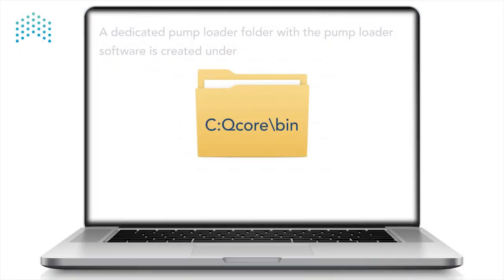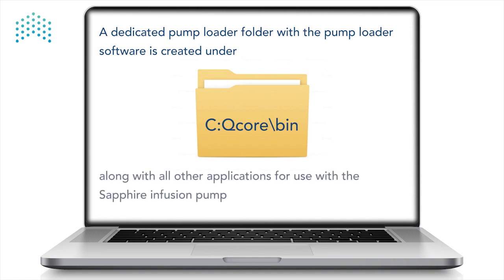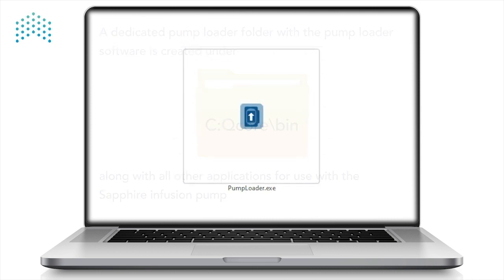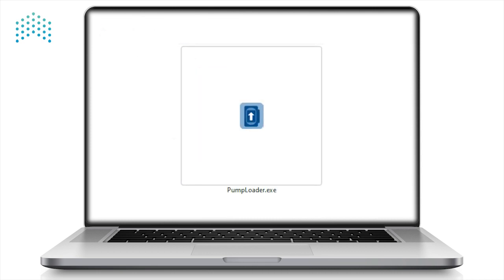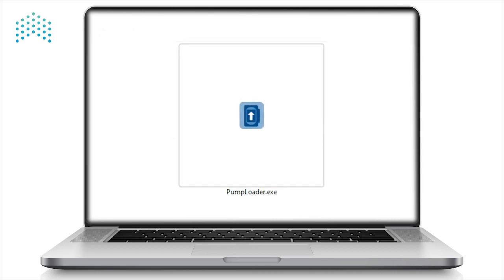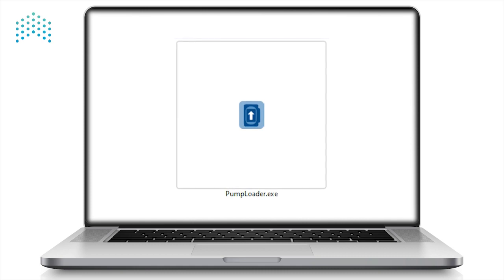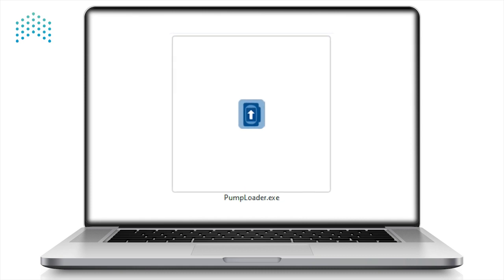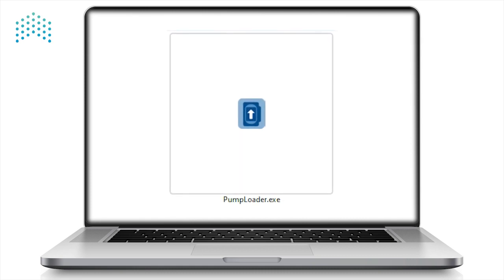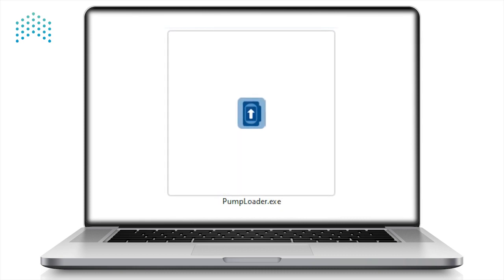A dedicated pump loader folder with the pump loader software is created under C QCore bin, along with all other applications for use with the Sapphire Infusion pump. Now that the software is installed, we can use the pump loader software to upload software revisions to a Sapphire Infusion pump.